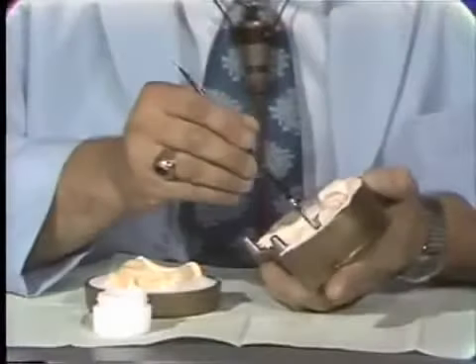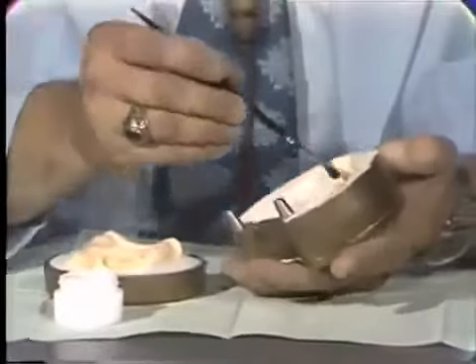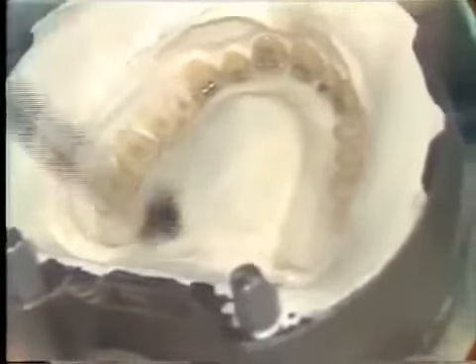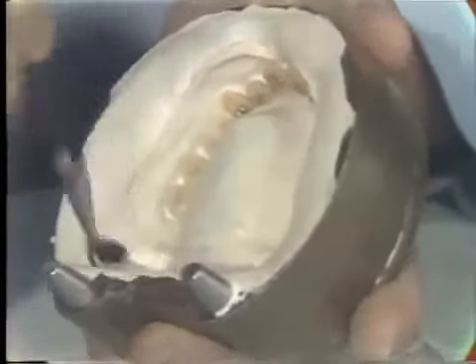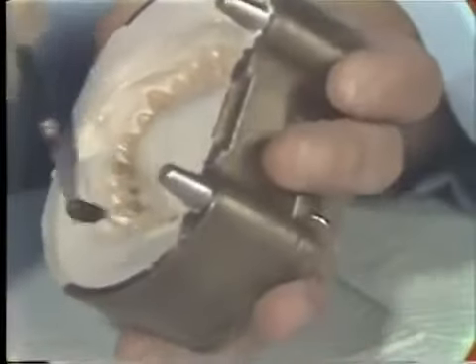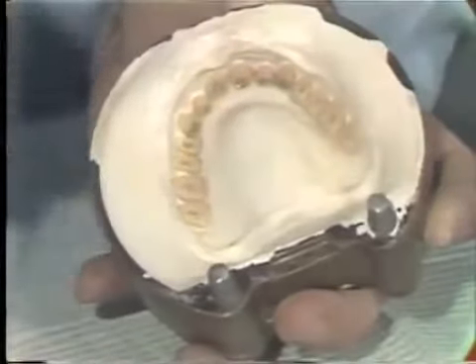And now I'll do the palate. We try not to get any excess material on the teeth. This is even more important when you're using acrylic teeth because you would like the teeth to actually bond to the polymer. We simply paint the palate, as you see here, and we also coat the other surfaces of our flask. Sometimes you'll incorporate a little hair from the brush, and it's best to remove this, particularly if it's in a critical area around the teeth, because it will be processed into the acrylic.